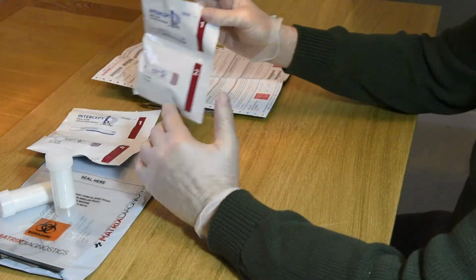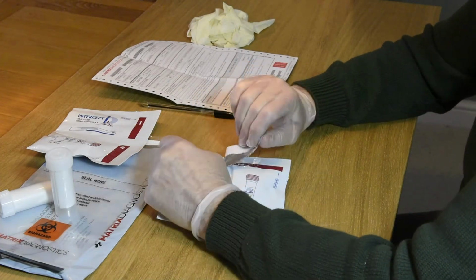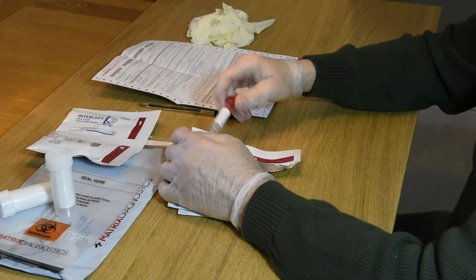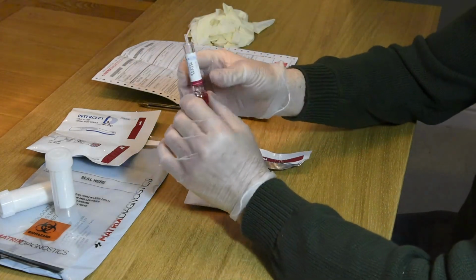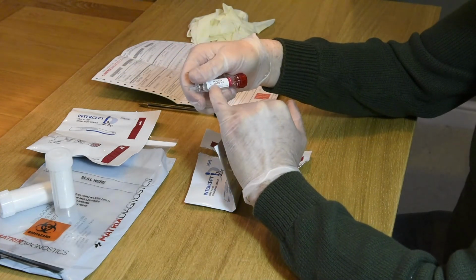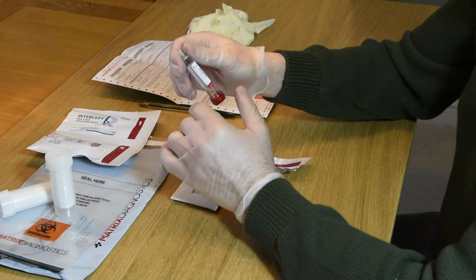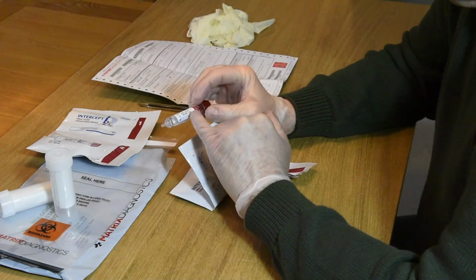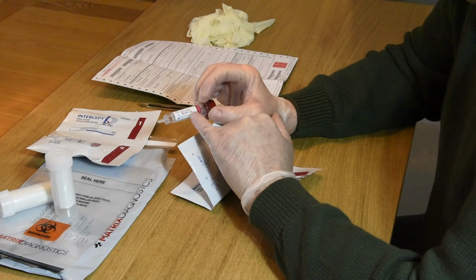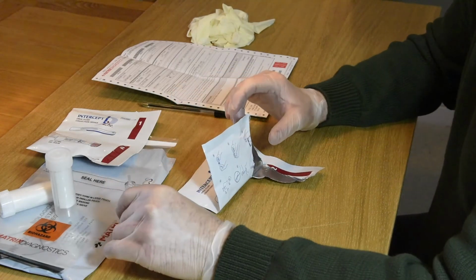So I generally tend to get the employee to do this one at a time. So I open one pack up. So what we should have is a little vial with some suspension fluid in. The date and lot number of the kit clearly stamped on the side of the vial. Please don't use testing kits that are out of date, because if the laboratory receive an out of date kit, they won't be able to run the test. So we just put that to one side for a second.